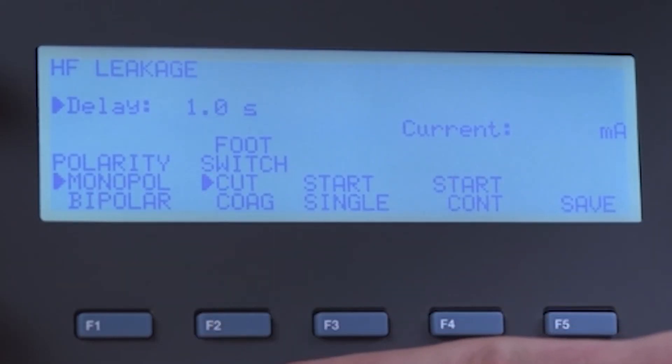Select cut or coag. Push F3 to start a single measurement.